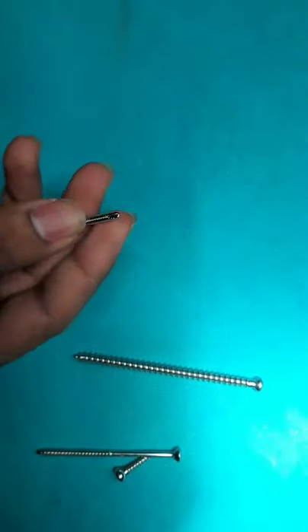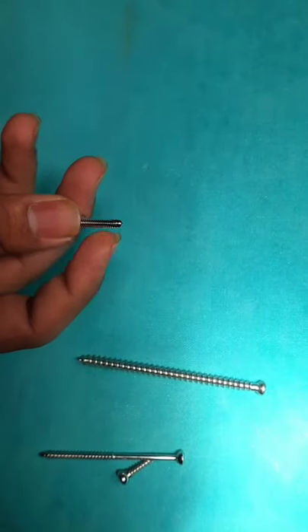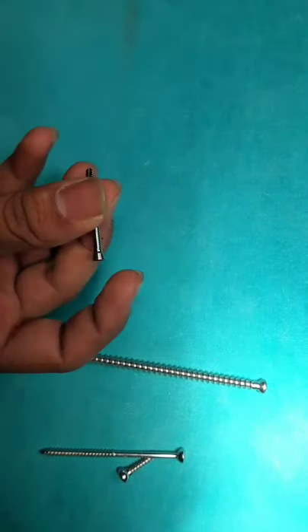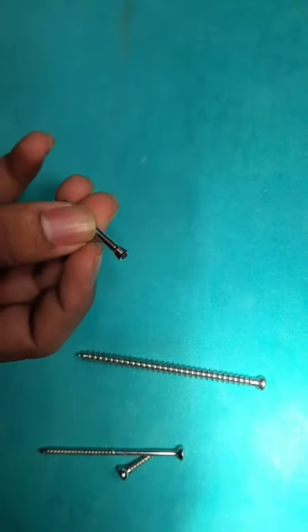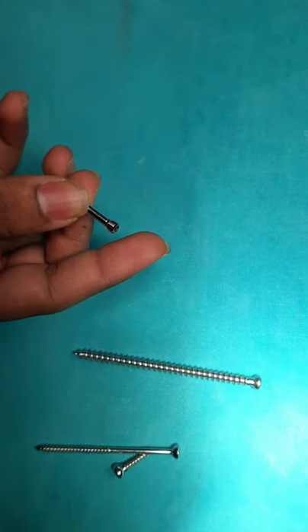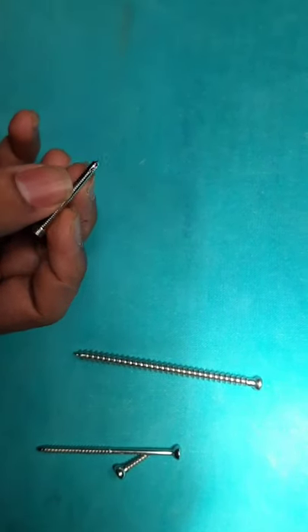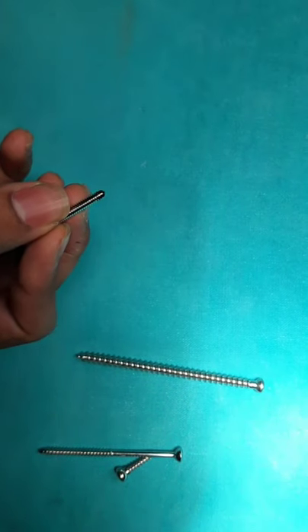This is the self-drilling self-tapping type of screw. These screws are used in MIPPO technique—minimally invasive percutaneous plate osteosynthesis. They are mainly used in the diaphyseal area and provide better purchase in osteoporotic bone.